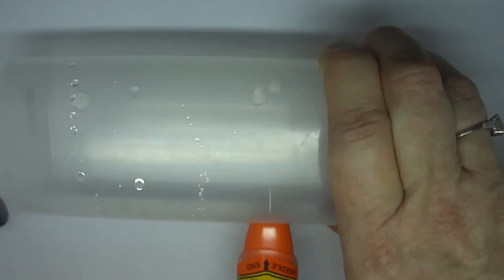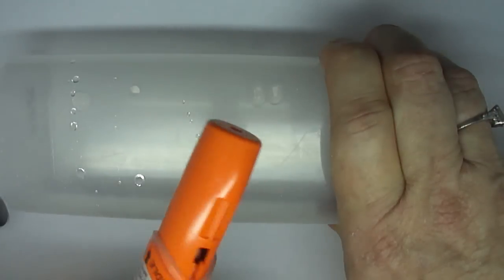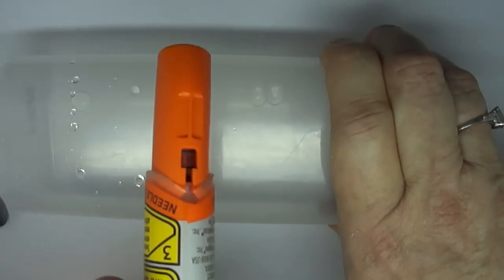You can see the needle remains out. As the device is withdrawn, it is covered by the needle cover. No exposed needle.